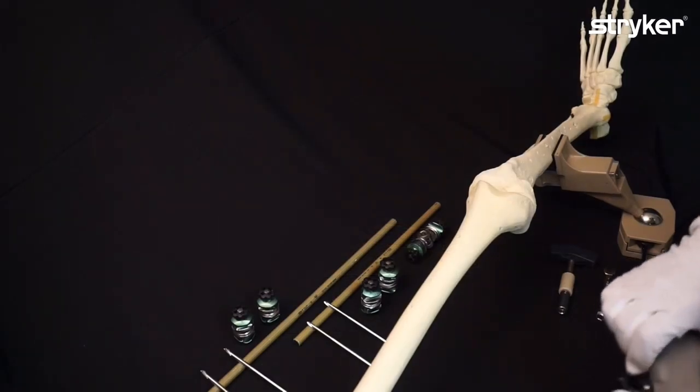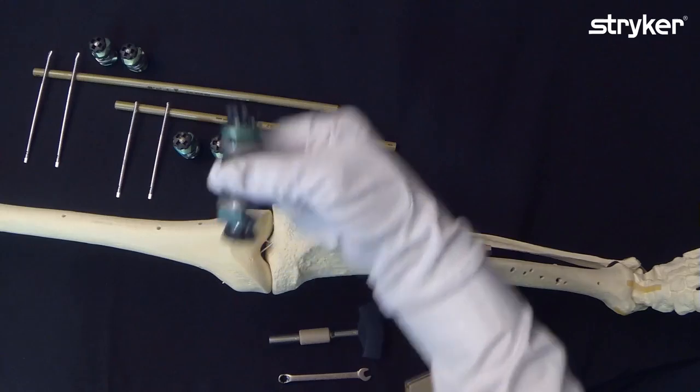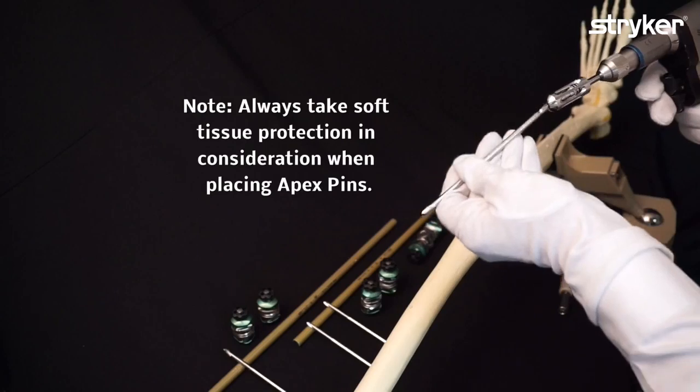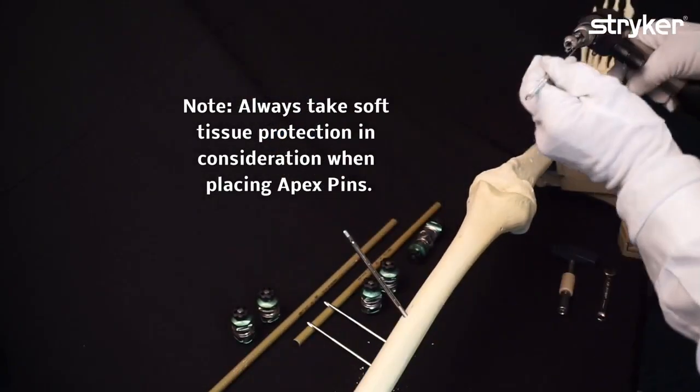What we would like to do is come in with two bars, linking them with a multi-planar coupling - a very easy and efficient way of doing it. The pins would be placed anterior or lateral in the femur.